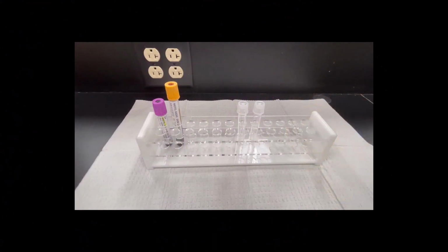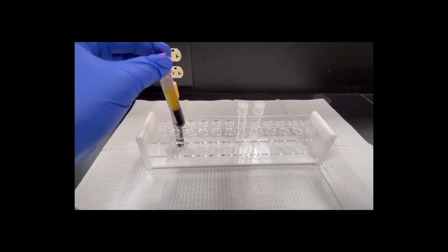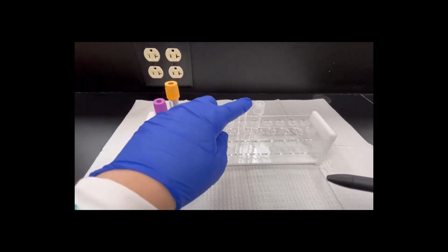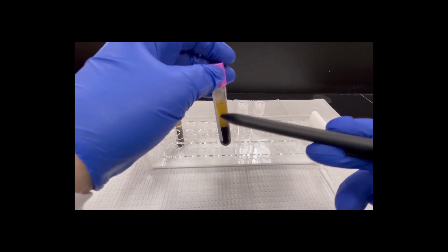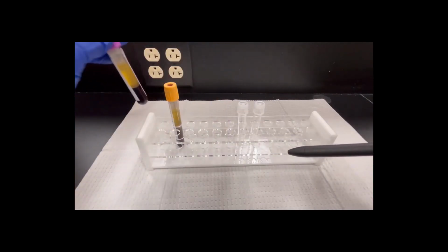This video is going to show you how to set up an aliquot tube. When we collect a specimen within 2 hours of collection, we have to remove the plasma or serum off of the cells and get it into an aliquot tube. Because don't forget, the cells are still alive and metabolizing and utilizing some of the things in the serum we might be trying to test for. So we got to get that removed within 2 hours.